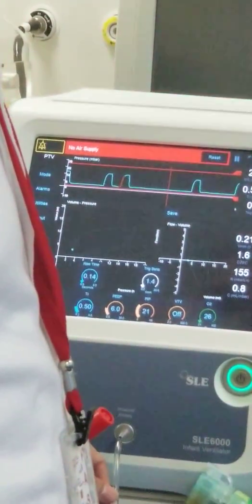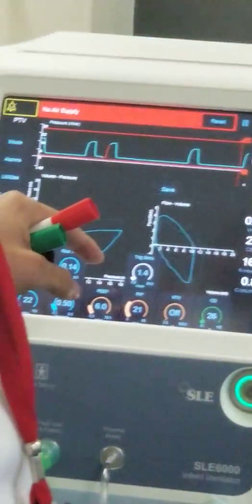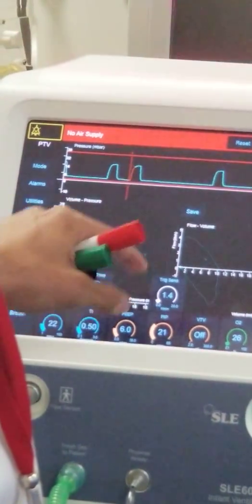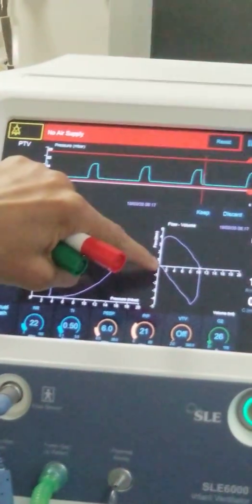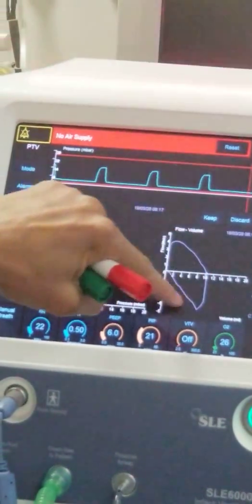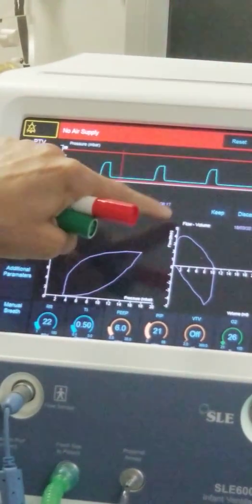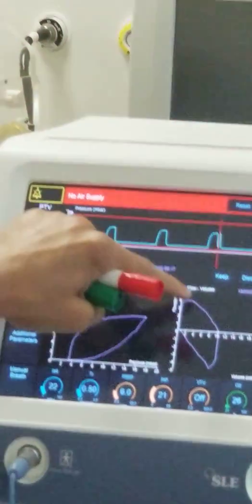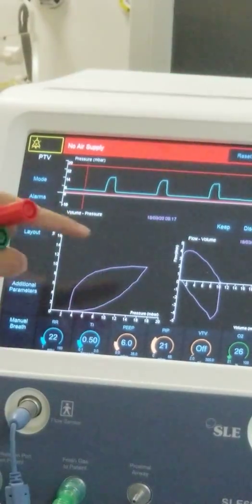After adjusting the rising time, you can see some improvement. If it is not improved, you need to increase it more. You can see the peak inspiratory flow: the flow increases until it reaches its static peak, and then decreases until it reaches the maximum tidal volume. When you see an overly steep rise, try to increase your rising time.